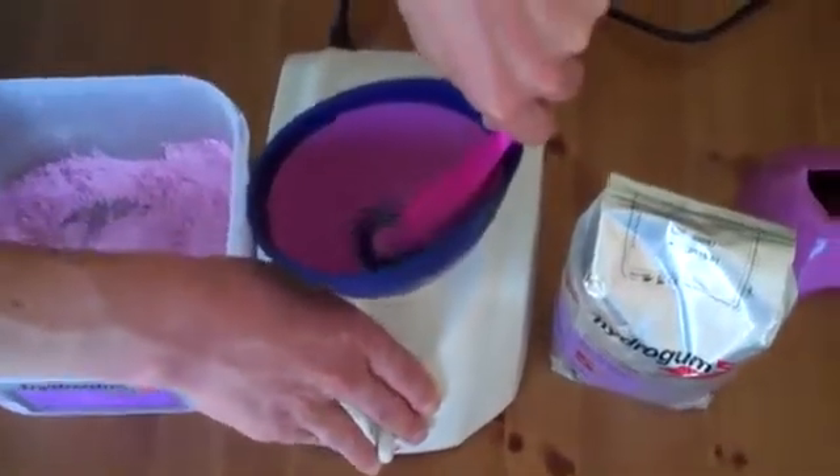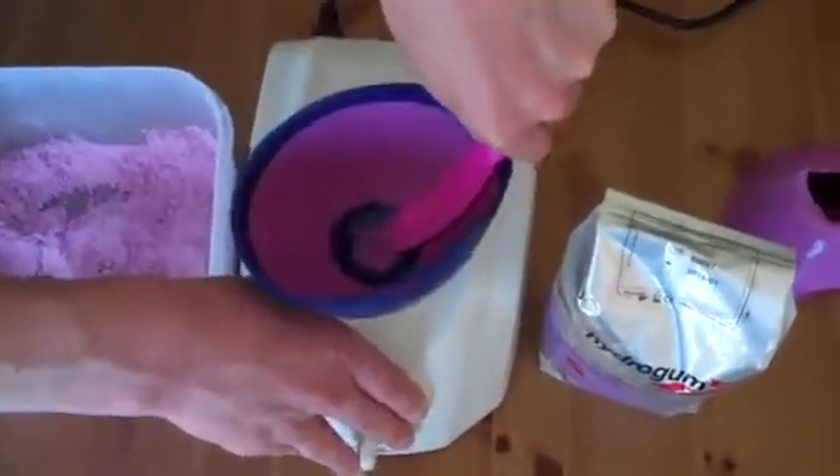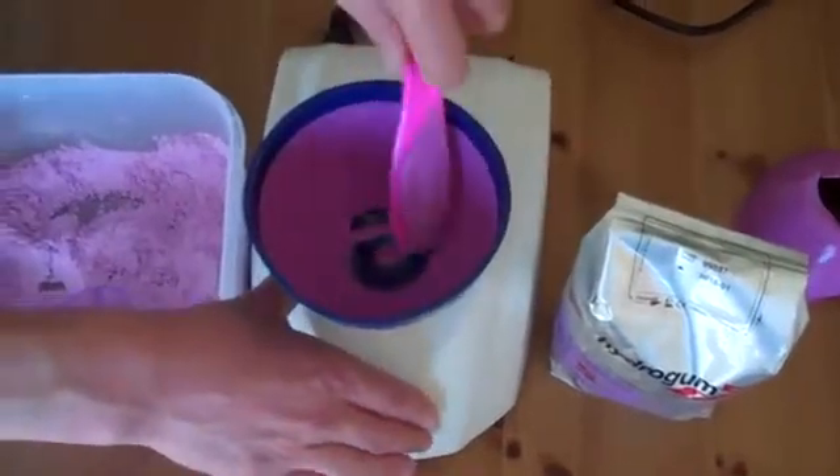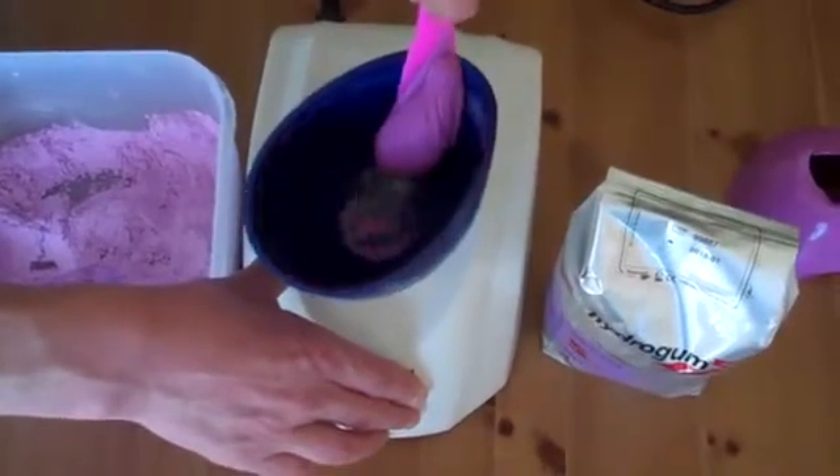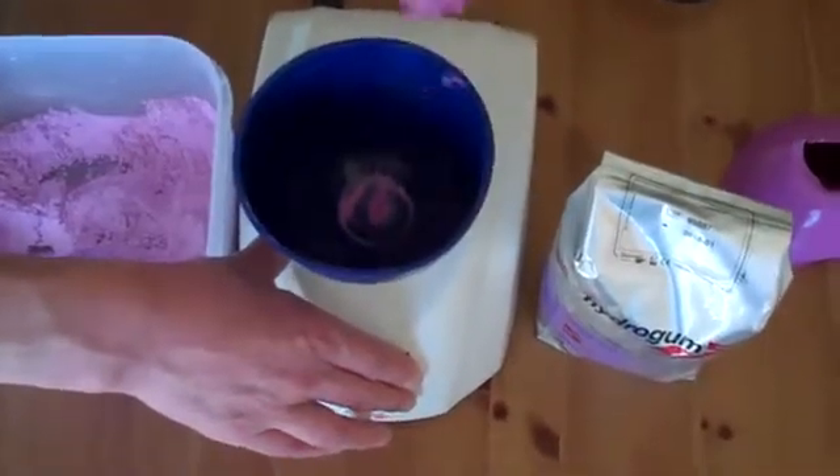You really can get a lovely mix. It's almost like Mr. Whippy ice cream. That's mixed. And to get it onto the spatula, put it onto the slow speed and it almost cleans the bowl for you.